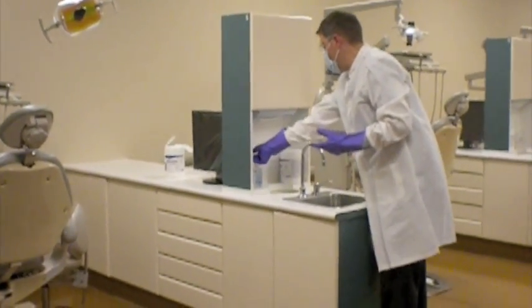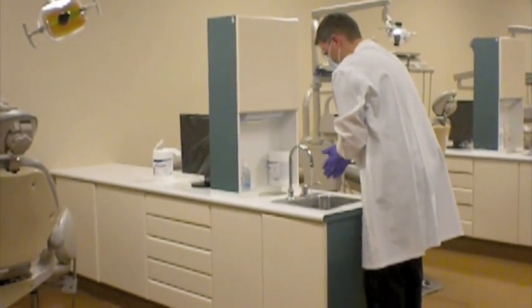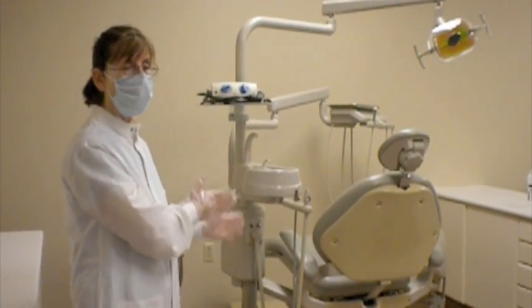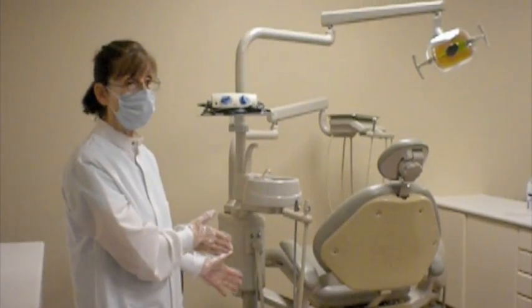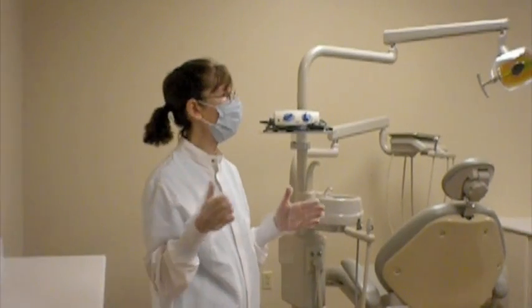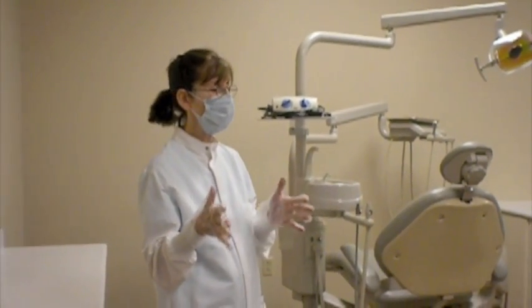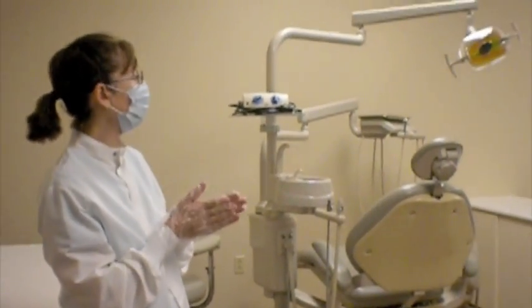Questions on that at all? Okay, so right now he has just finished sanitization. He would wash and perform that entire procedure again. We're not going to do that again today because we're going to show you a little bit of how you want to realign this unit to get out of here at this point in time, so we can take any questions or have conversations about what we need to for the next session.